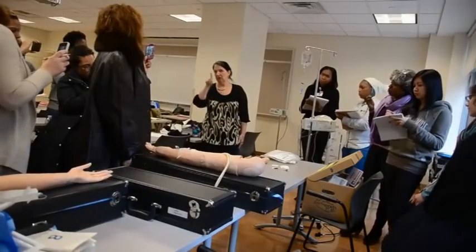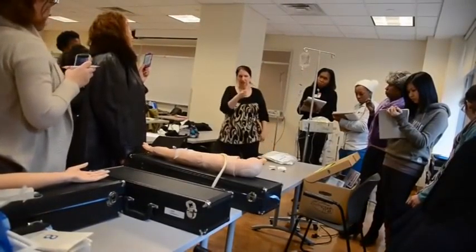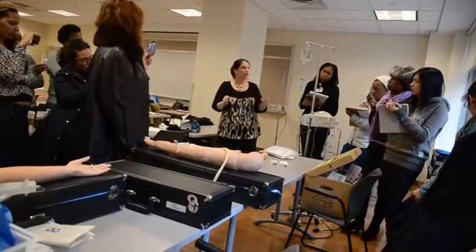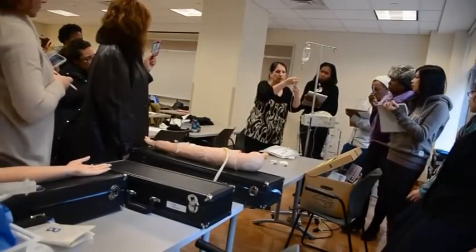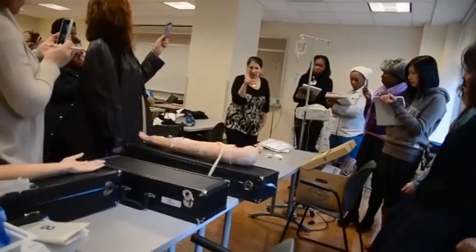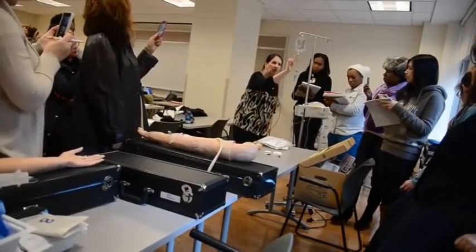So it's cc's times drip factor divided by the number of minutes, and we'll tell you 30 or 60. So 50 times 15 divided by 30 or 60, whichever I tell you. That's going to give you drops per minute. So you'd say, oh, my answer is 25. You would watch this drip for a full minute — none of that 15-second jazz times four. No. And we don't do that for heart rates either. One minute you watch. 25 drops.